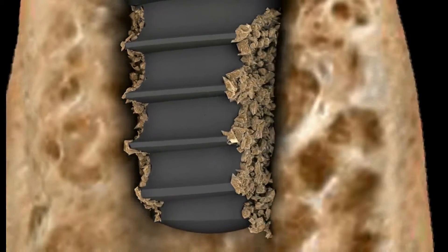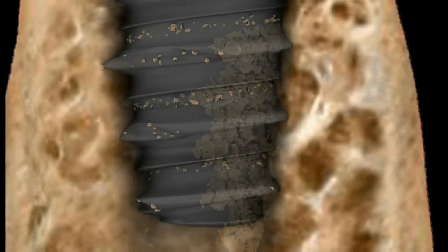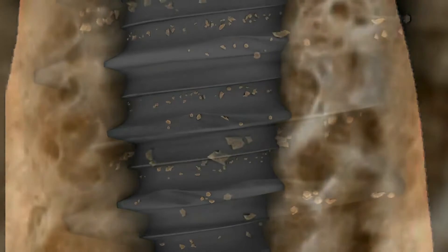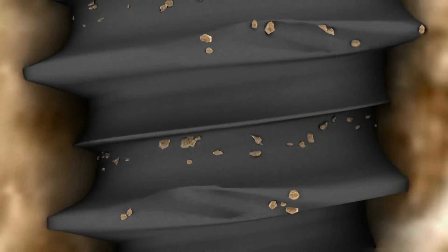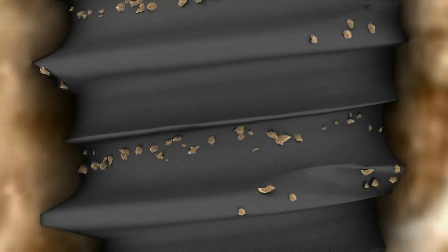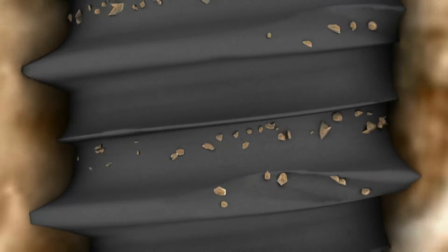When clogging is maximum, high compression occurs on the untouched threads. Now look at this contrast. Blossom cutting features have been distributed along the implant. They are angled and augmented by evenly spaced crescent-shaped helical cutting segments. This configuration creates fewer, smaller, and more discreet bone chips. The chips are also evenly dispersed through channels, eliminating crowding.